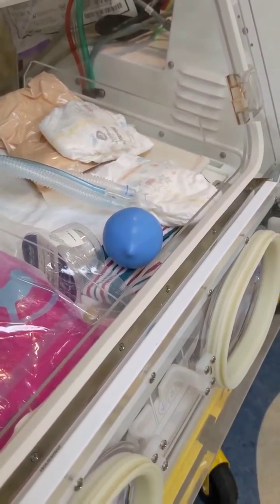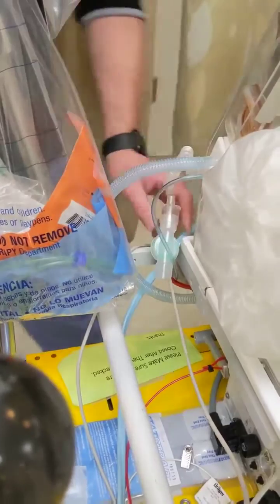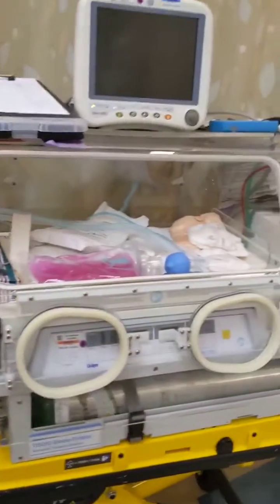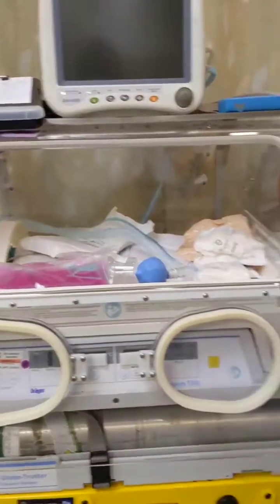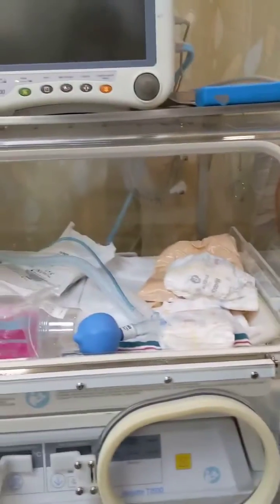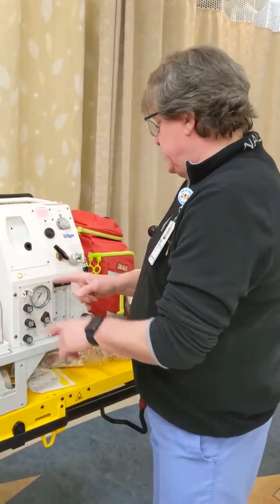Okay? So the important thing to learn here is to be very aware of anything you're placing up here at the head of the baby and near the exhalation side of the circuit, and that there should always be eyes on the ventilator component of your circuit or very nearby, frequently checking that. Okay, so this is essentially the setup for a ventilator circuit.